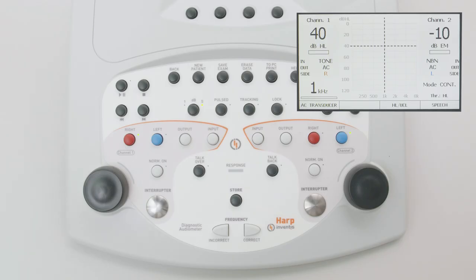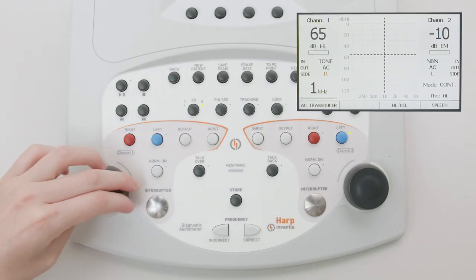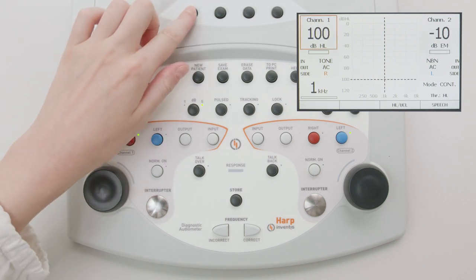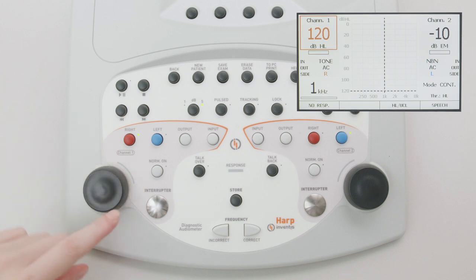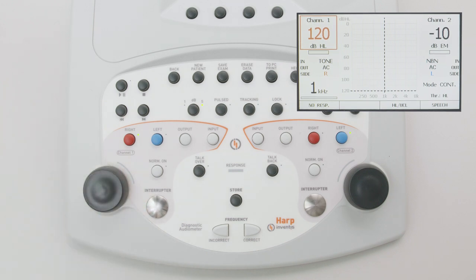Please note that for safety reasons, if a stimulus signal stronger than 100 decibels HL is to be presented, the operator must first press the higher decibel button, which is active only when the stimulus intensity reaches 100 decibels HL.